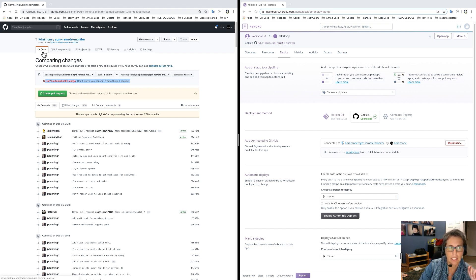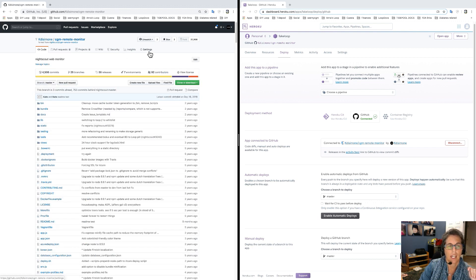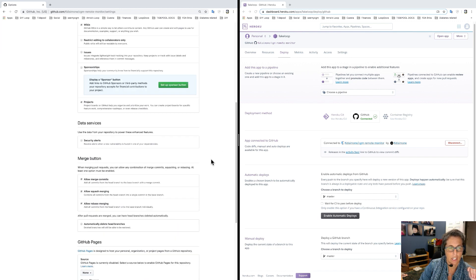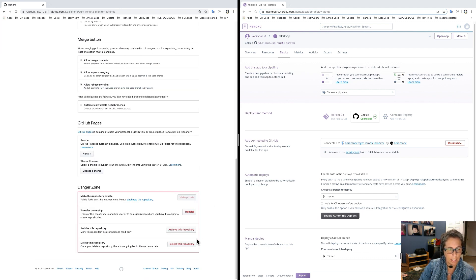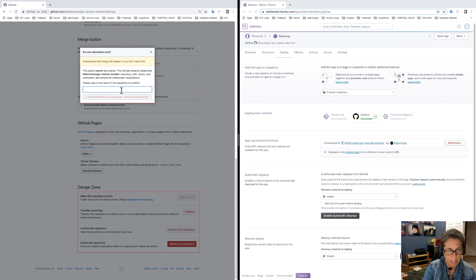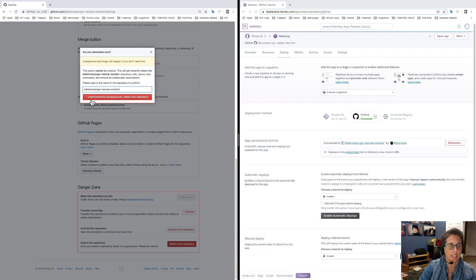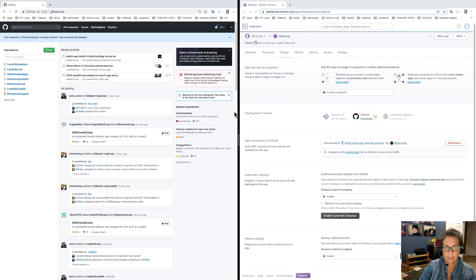Here's the easy way to update your code: click on Settings for your cgm-remote-monitor, go all the way down to the bottom, into the danger zone. Click on 'Delete this repository.' It will ask if you're sure — go ahead and type your account name and cgm-remote-monitor, and say yes, I understand the consequences. Delete it.